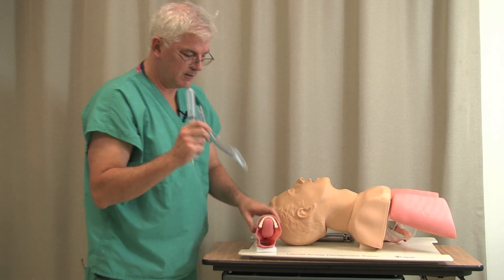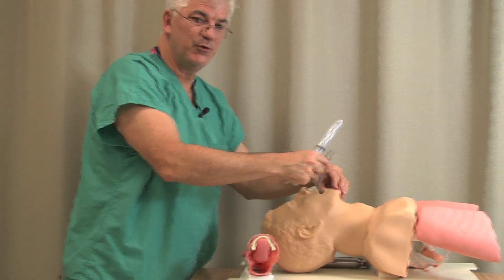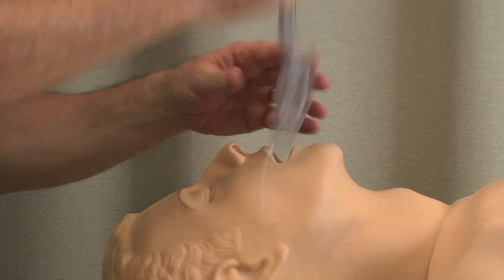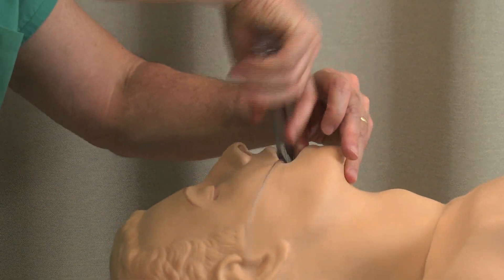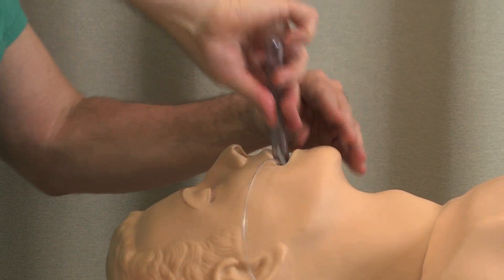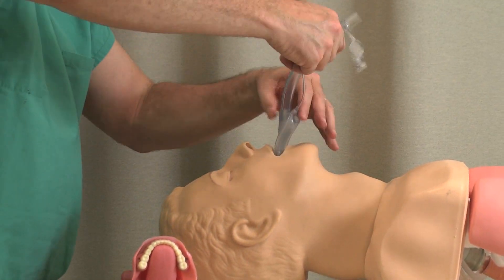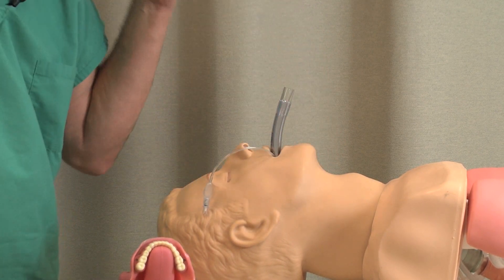Let's see how this thing works. You slide it in. I won't say it's foolproof, but it's certainly fool resistant. You just slide it in until it stops. I've seen people partially inflate it, put it in sideways and turn it, put it in backwards and turn it — everything but standing on your head and singing the Georgia fight song in three-part harmony. But the bottom line is, if you just slide it in like so, it tends to go in.